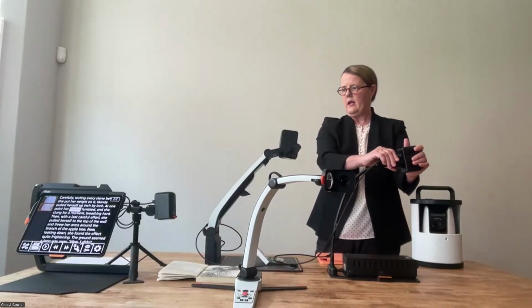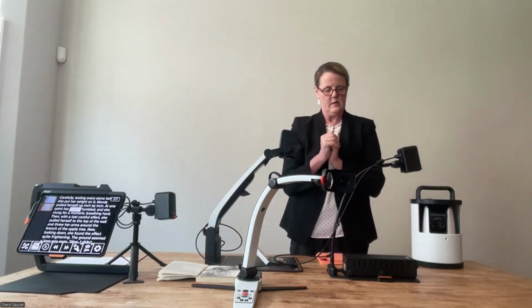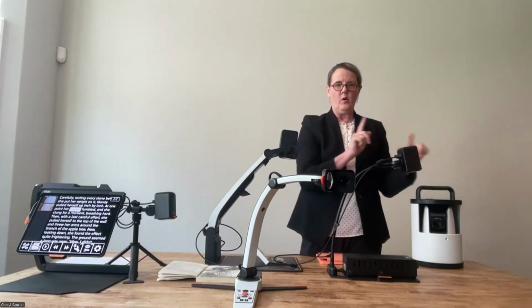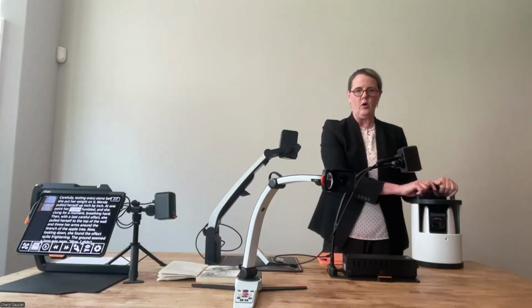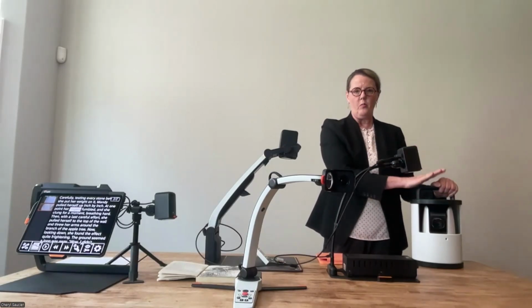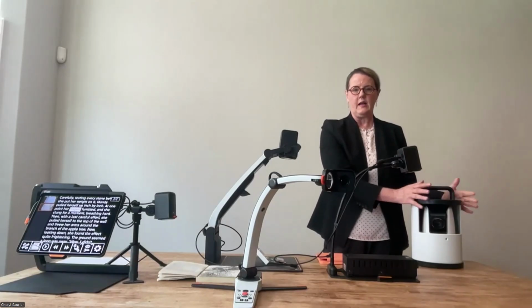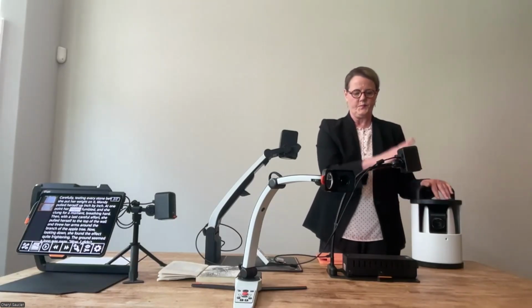So let's go through them again and talk about appropriate cases for these different products. Let's go in reverse. We already talked about big spaces, a need for a powerful camera at the end of a room, and a need for multiple people to be able to connect to that. That's going to be your wireless ergo.